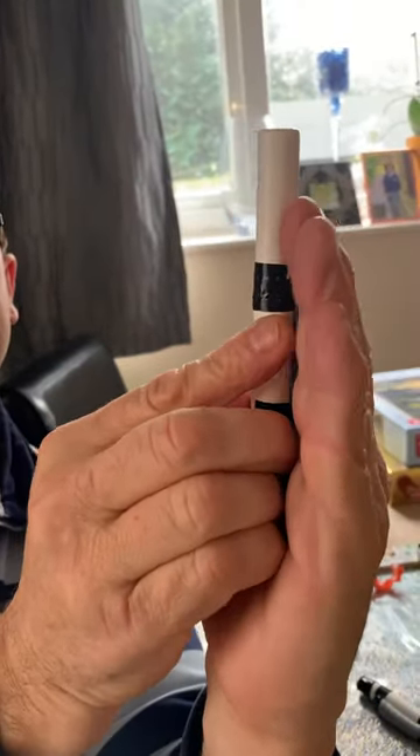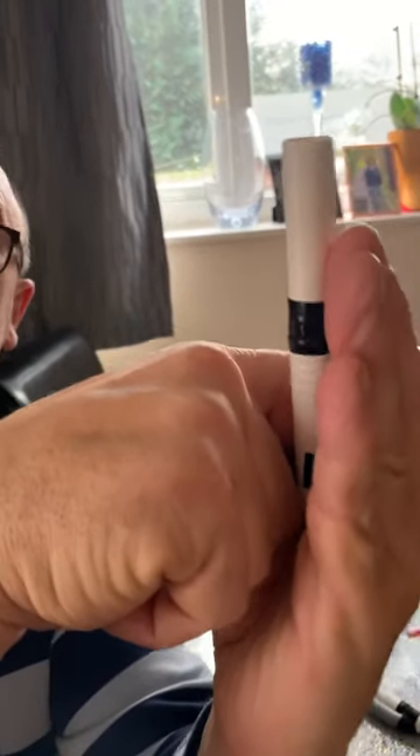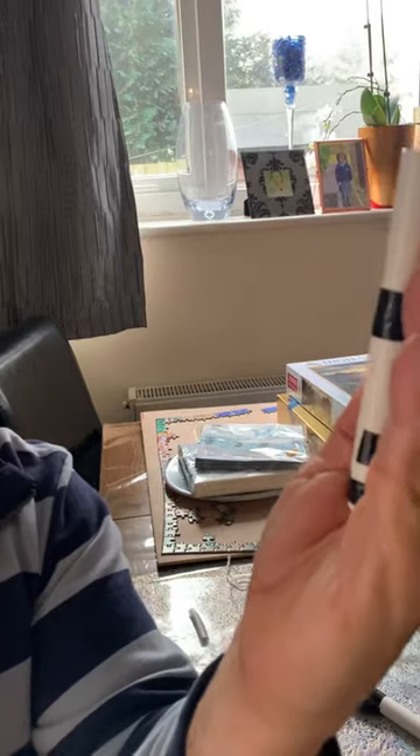When installing, this edge goes against the pocket. So if this is the Doberman's ear and the pocket is where my knuckles are, you put this in like that, and then just tape as normal with a bridge. I use a tape bridge, and that is it. Good luck with your pockets.